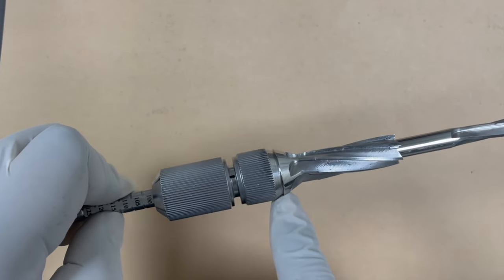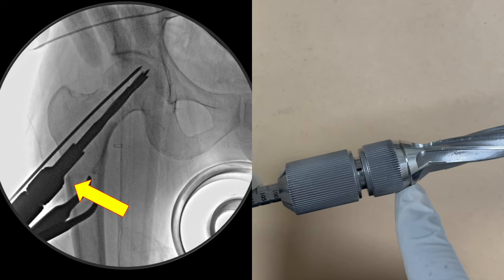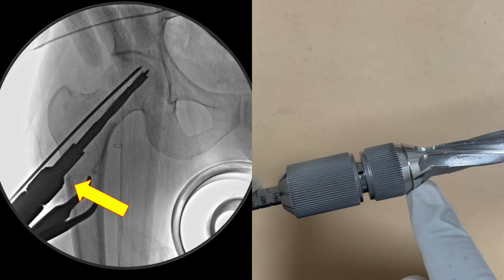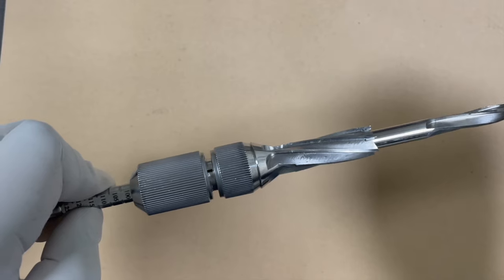The proud part of the reamer should enter the lateral cortex — you need not go beyond this part, because this is where the reaming should end. You should not go beyond this area, otherwise there will be chances of perforation of the lateral cortex.